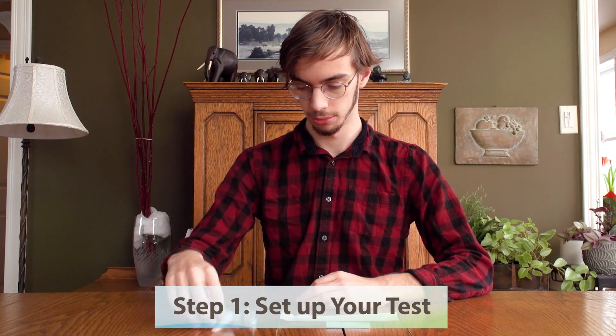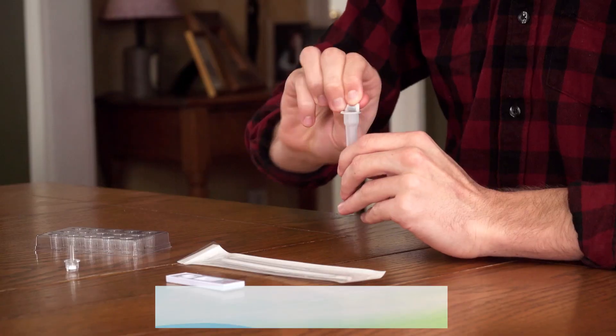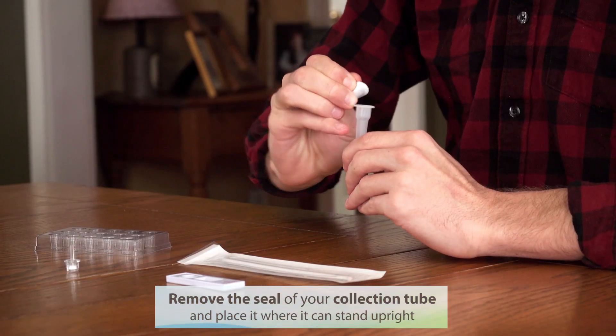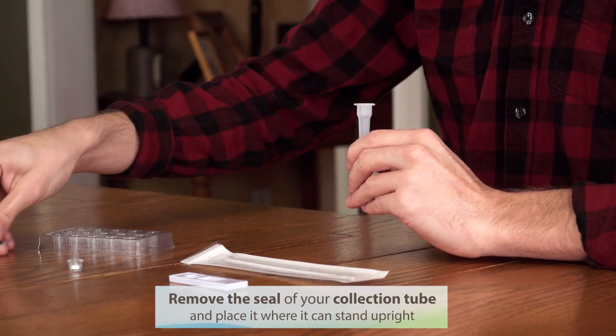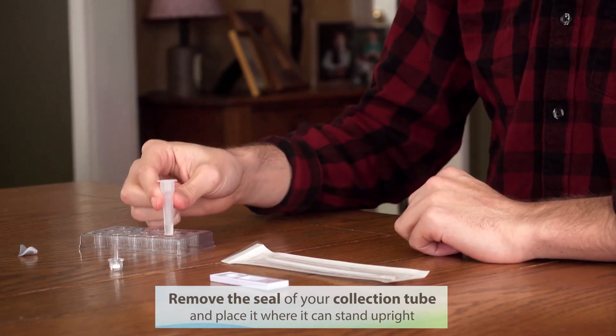Step 1: Set up your test. Remove the seal of your collection tube and place it where it can stand upright.